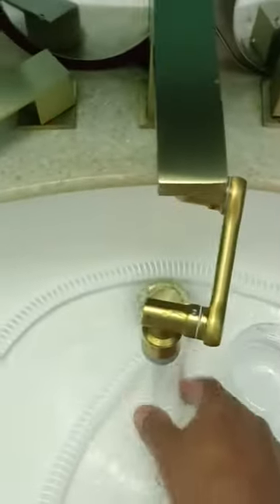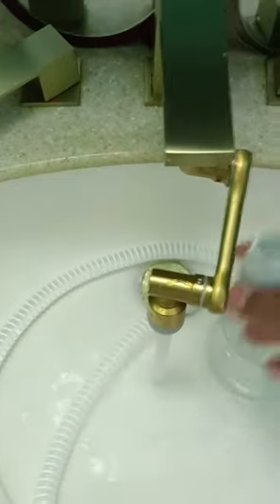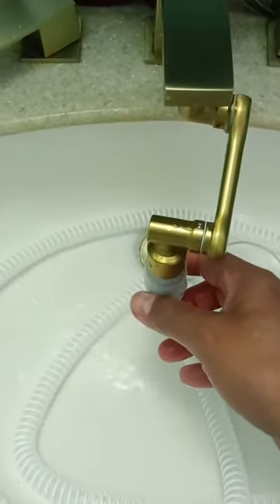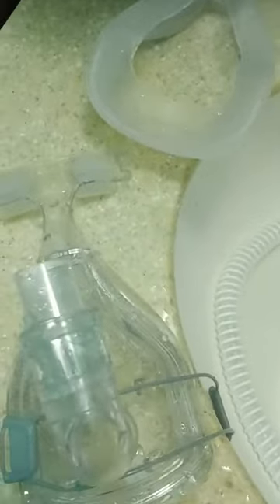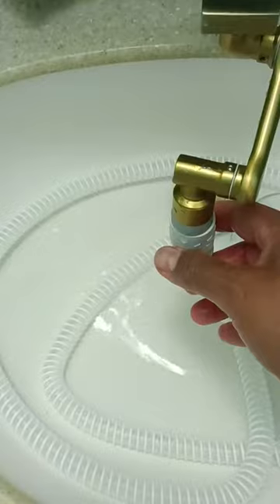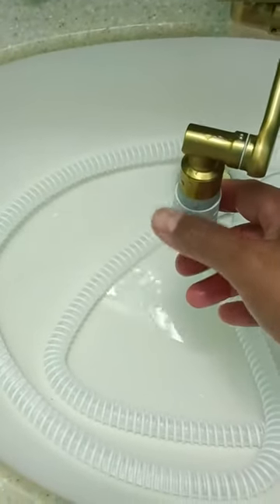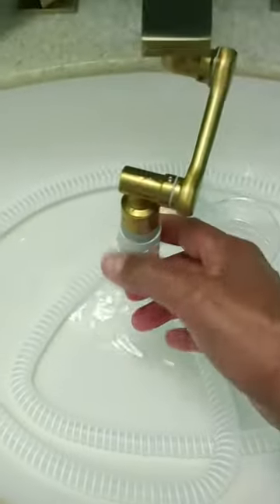I thought while I was going to clean the cushion, I put everything in here. I put two tabs and they just dissolved right in. And now I'm rinsing it off. I cleaned the hose, the CPAP mask part, and the holder. I'm not sure what they call that. And now I'm rinsing it using this little faucet attachment.